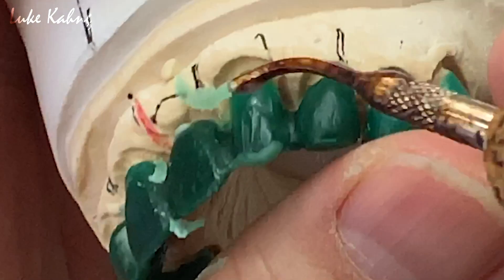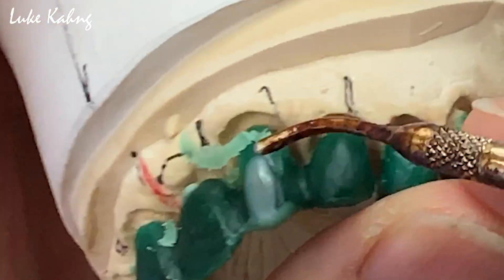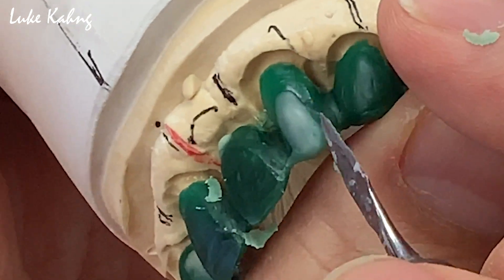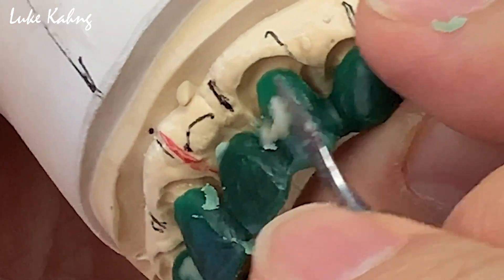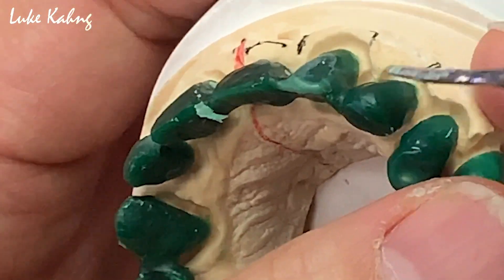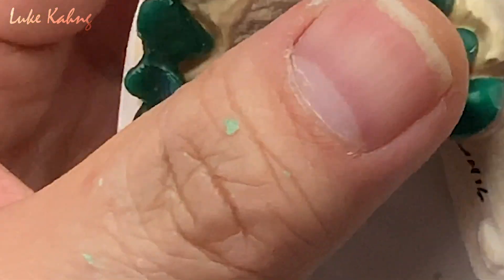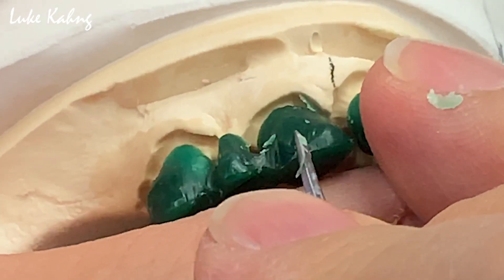So you have this. Just a little bit — not too much, just a little bit down. Like this — canine, okay, fine, add it. Now here's a challenge. You have to make it really thin as possible.